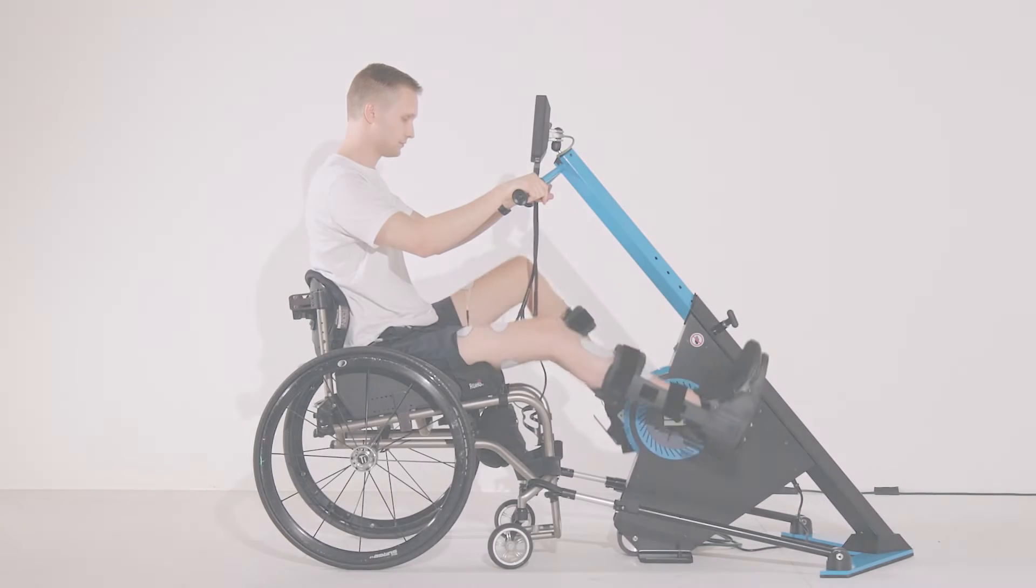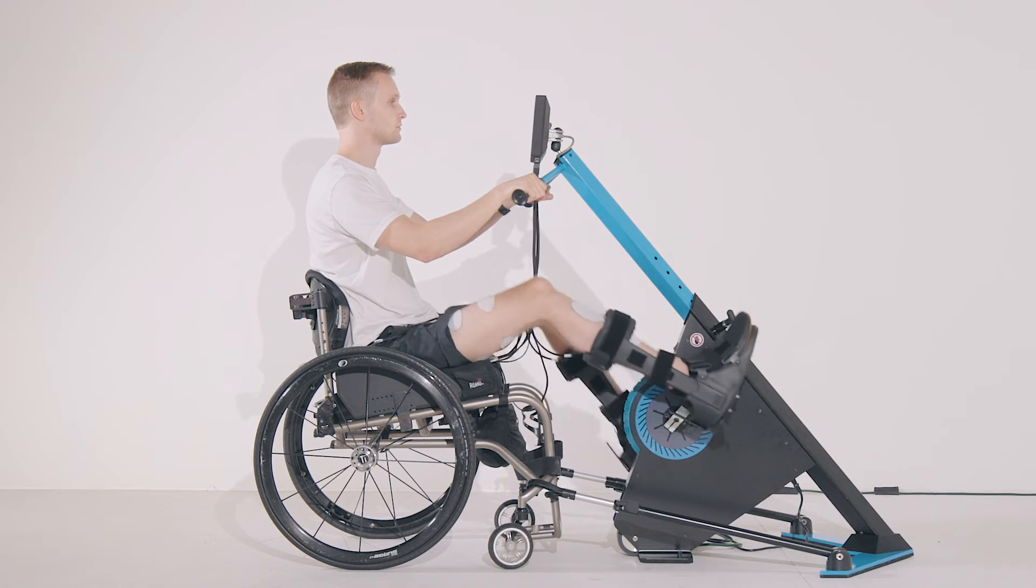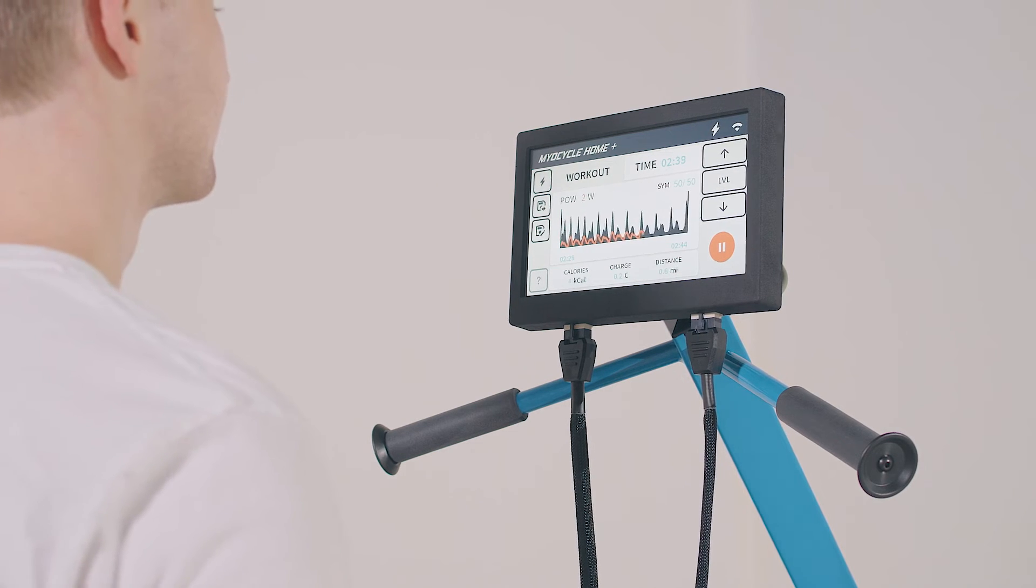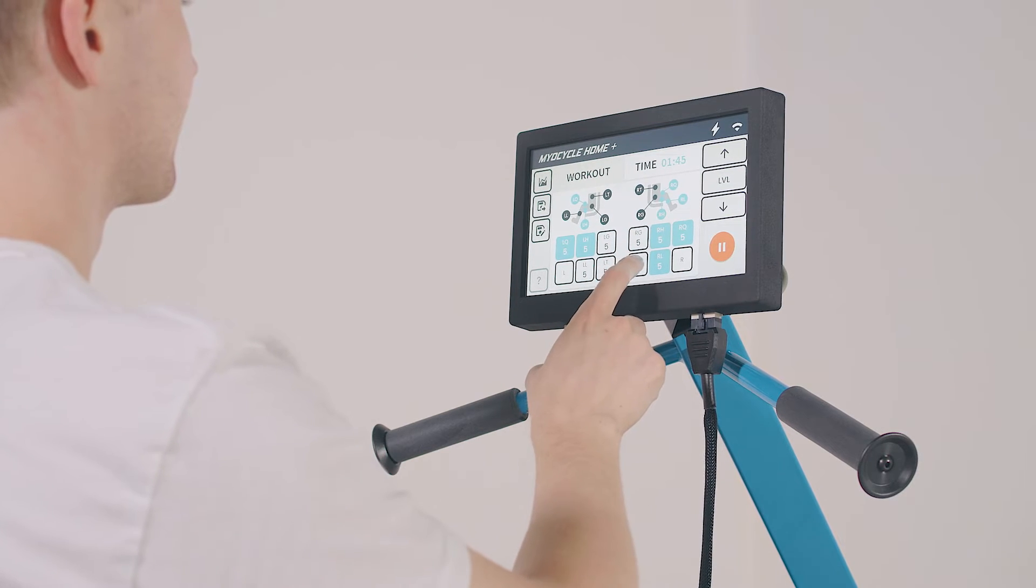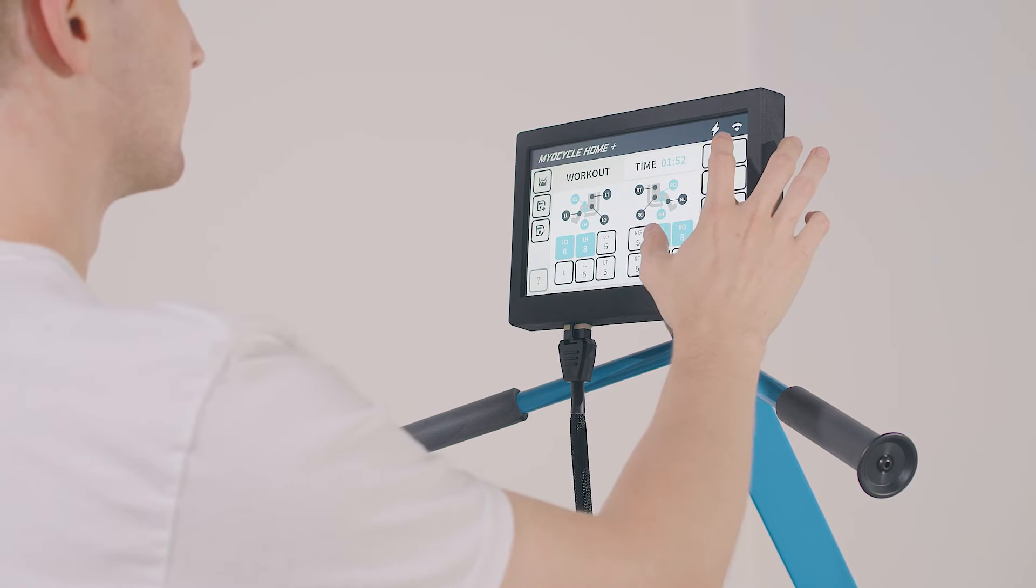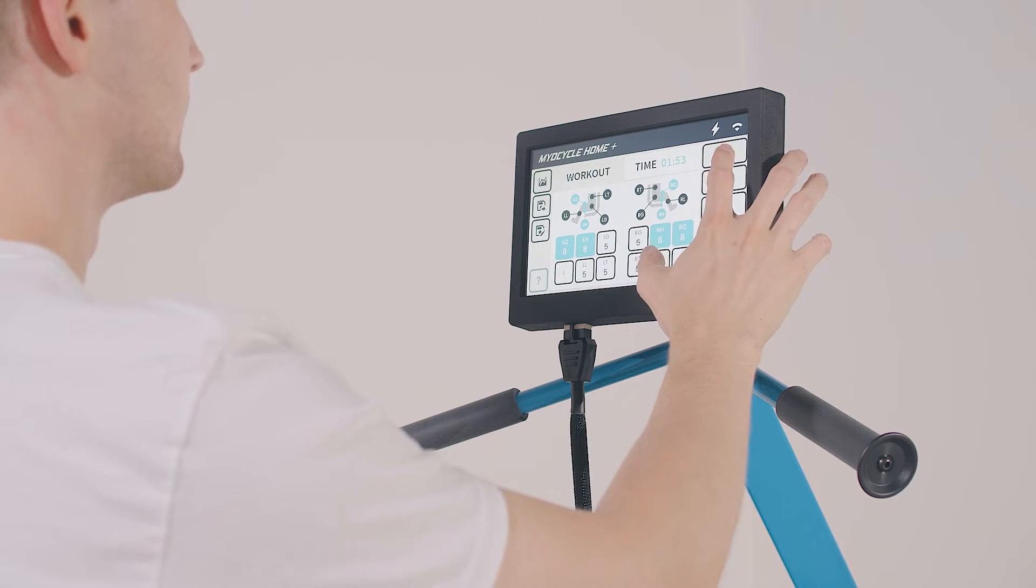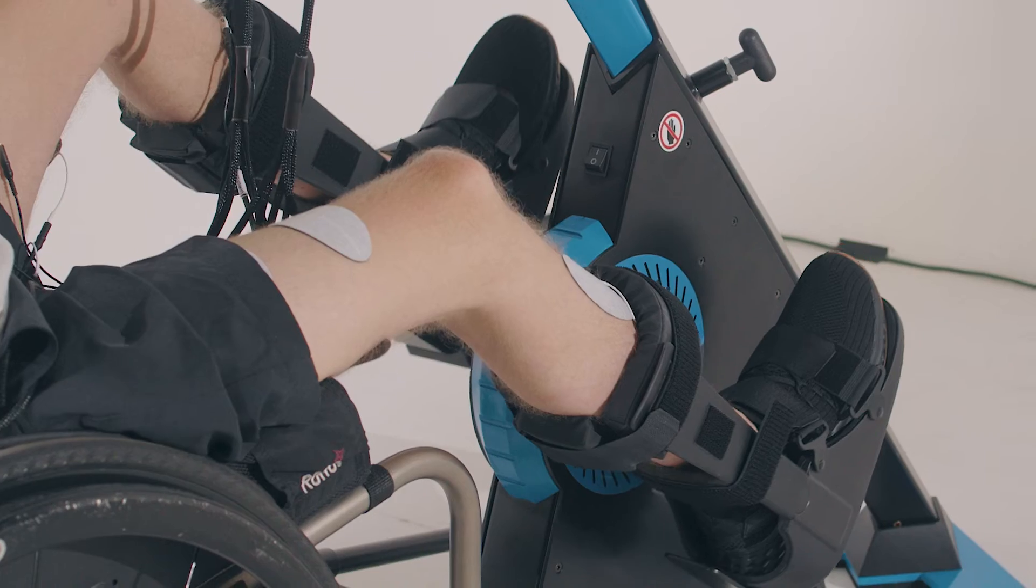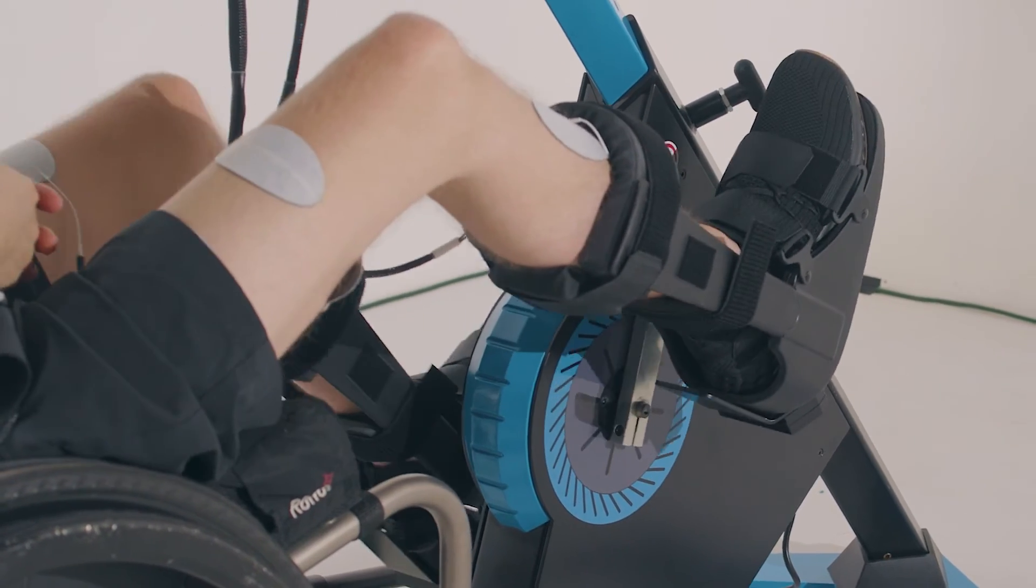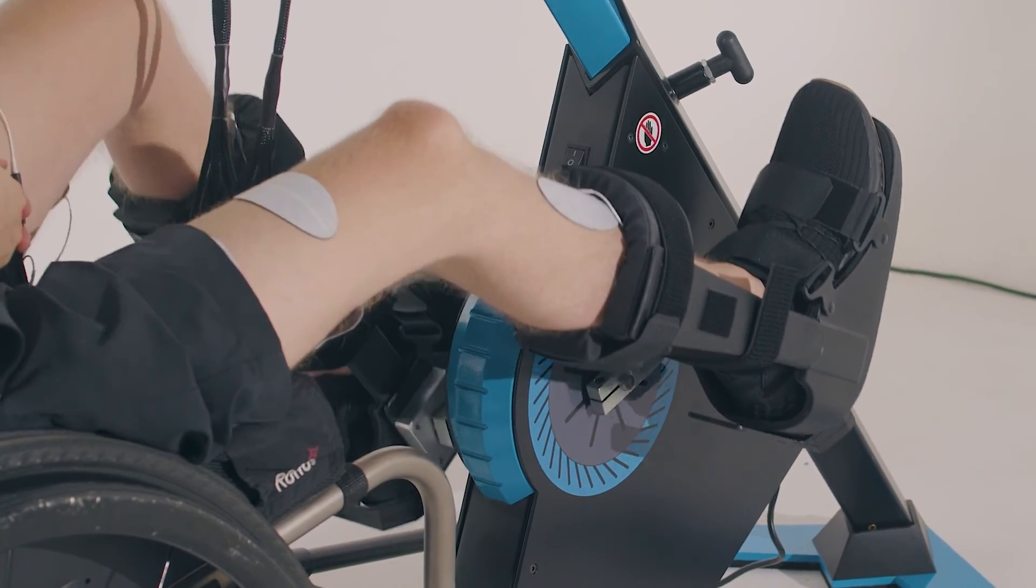During a workout, you have complete control over the stimulation. There are two screens that you can toggle between during the workout, the channel select screen and the power display screen. On the channel select screen, you can select or deselect the individual channels to set which ones you want to adjust. As you increase or decrease the stimulation intensity with the up and down arrows, it will affect all the channels that are currently selected. In this way, you can change the stimulation intensity for all the channels simultaneously, or for just one or a few channels at a time.